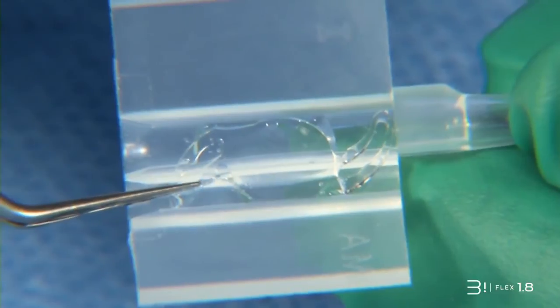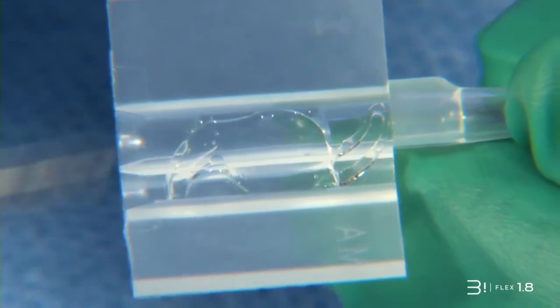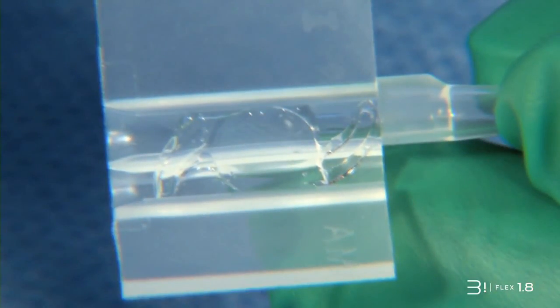Secondly, ensure that the distal haptics are not too close to the cartridge entrance to avoid the plunger capturing them. Fold back the haptics near the optic without overlapping them. Check that the haptics edges are positioned under the cartridge gutters.